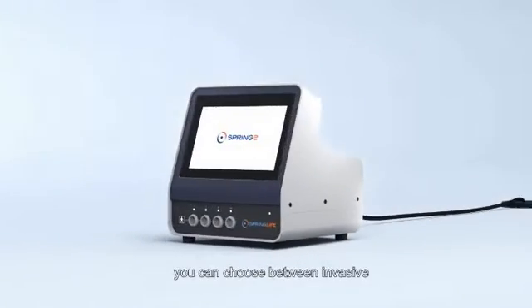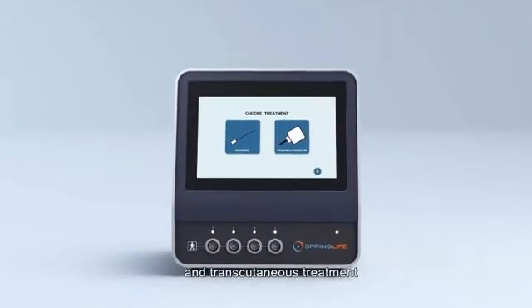After starting up the Spring 2, you can choose between invasive and transcutaneous treatment.